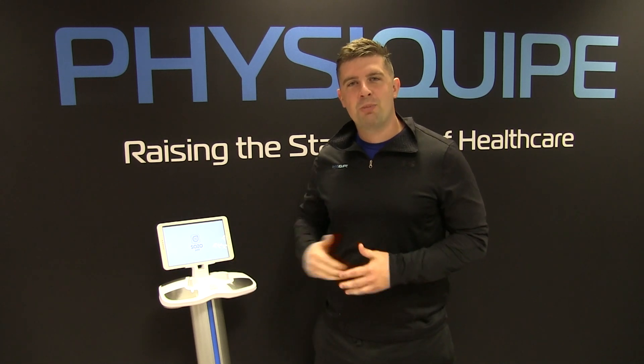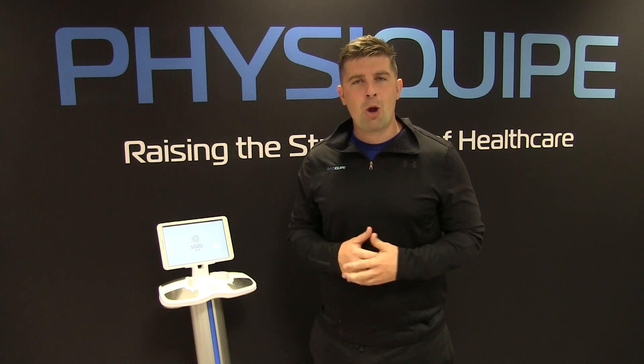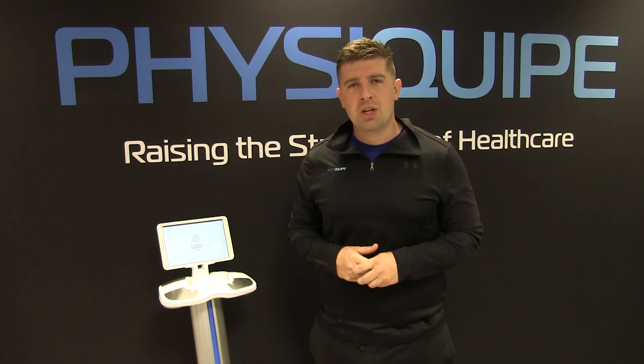This is Sozo Pro. Sozo Pro is a bioimpedance spectroscopy device used by sports scientists, nutritionists, physiotherapists and researchers to measure and track fluid levels and body composition.